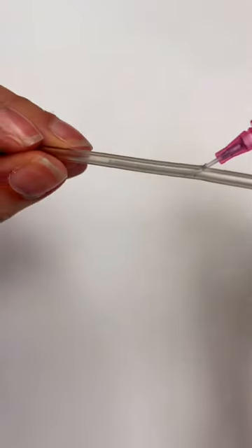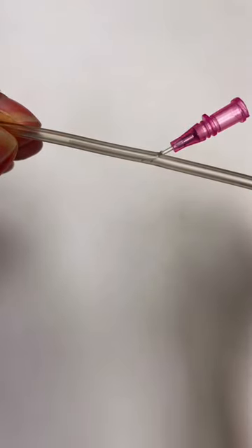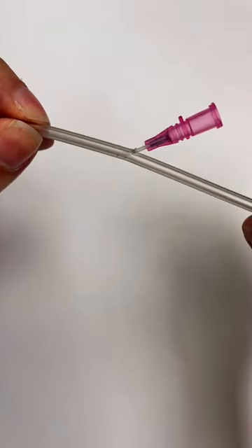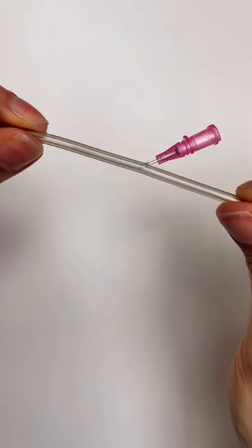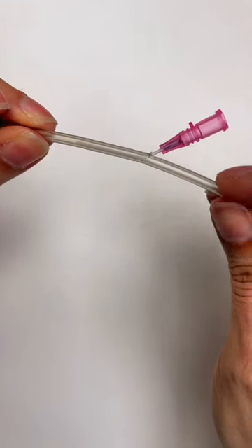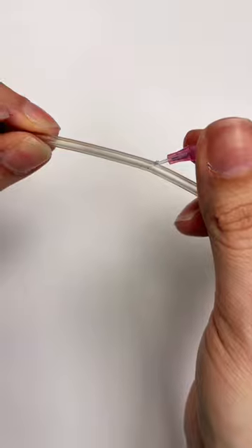This is what is actually happening in your patient's vein when you leave that catheter behind. You can also see here how much of that catheter is in this fake vein when there's no skin or subcutaneous tissue to contend with.